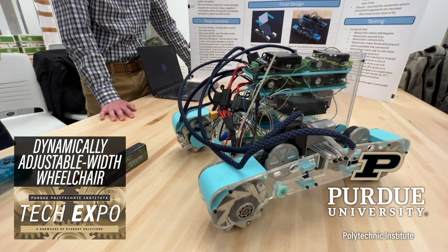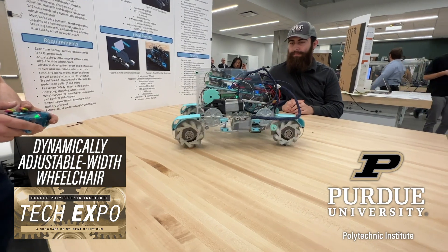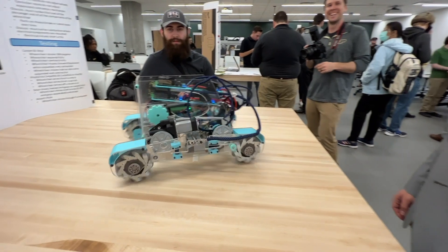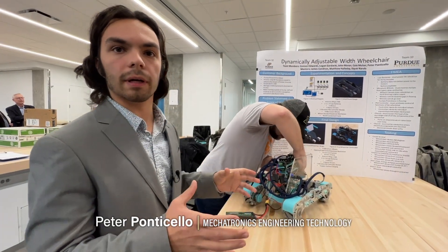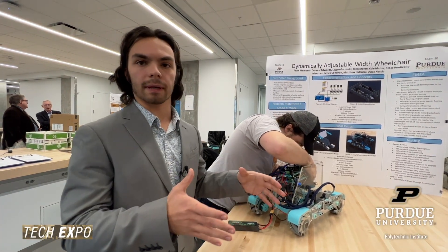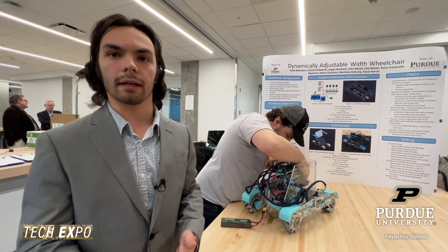The whole thing started initially with an FAA competition, and it was designing transportation through airports. An initial team came up with the idea of making a dynamically adjustable wheelchair that could fit into aisleways in airplanes, because people with wheelchairs often have difficulty getting to their seat in the airplane.